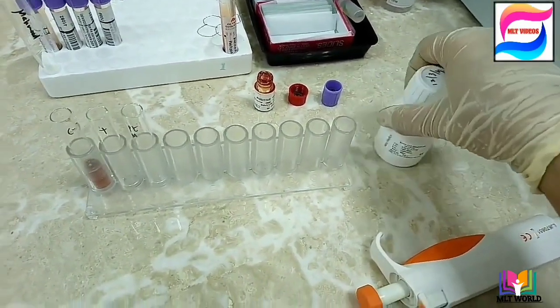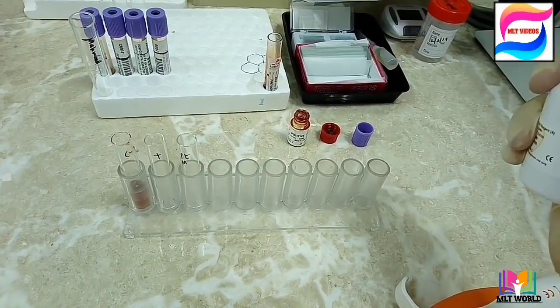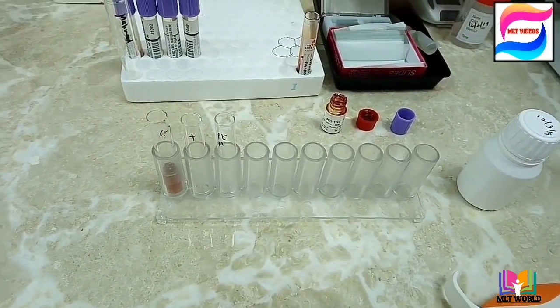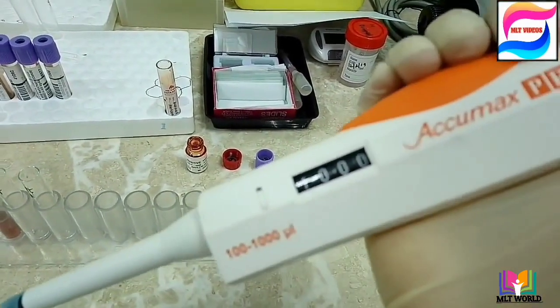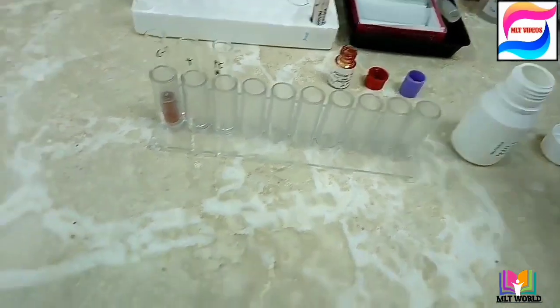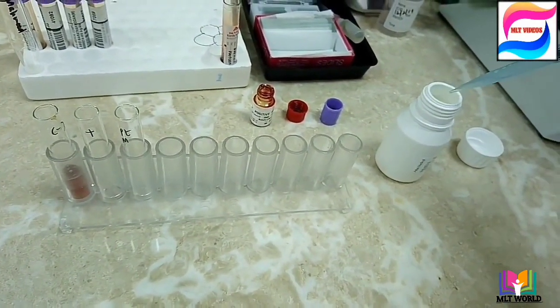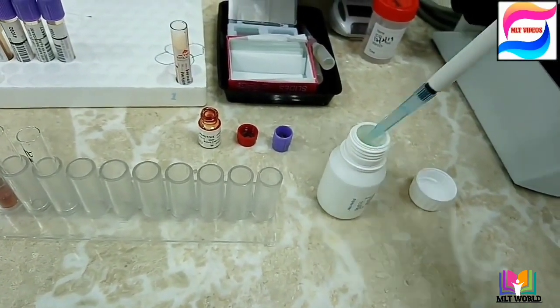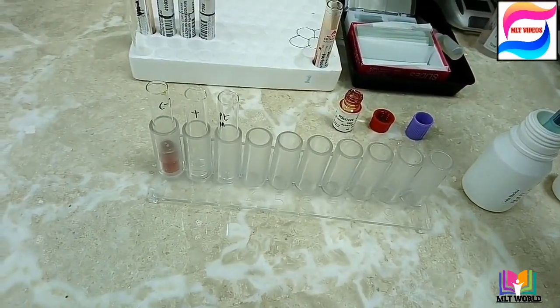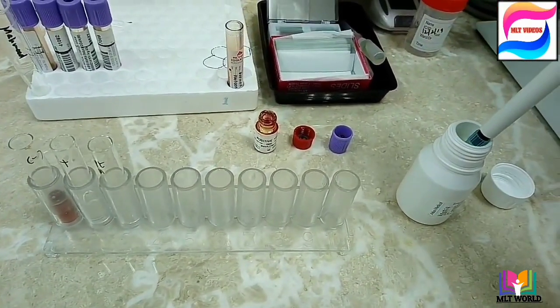When the reagent is ready, take 2 mL of working reagent and put it into the positive control tube and the patient tube. The negative control is already prepared. Take 1 mL first into the positive tube, then another 1 mL — making 2 mL total — into the patient tube as well.